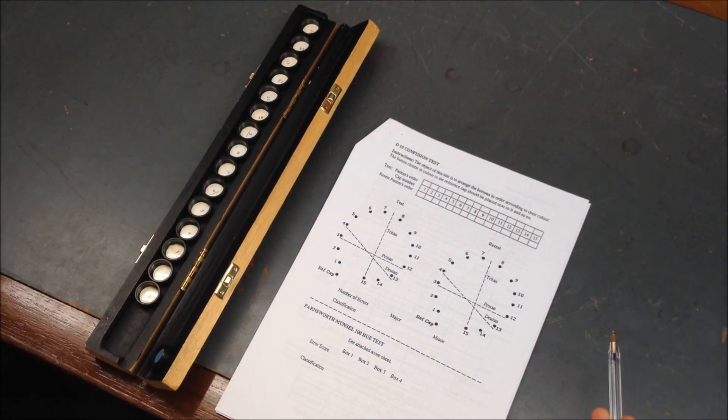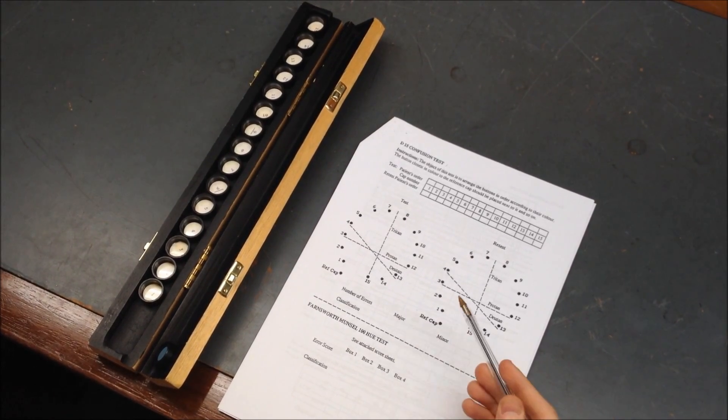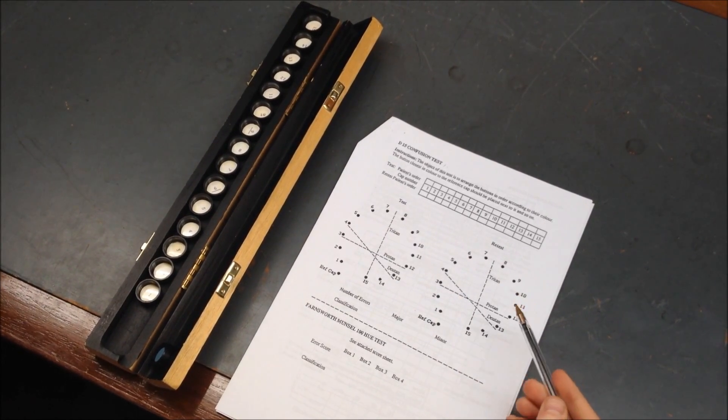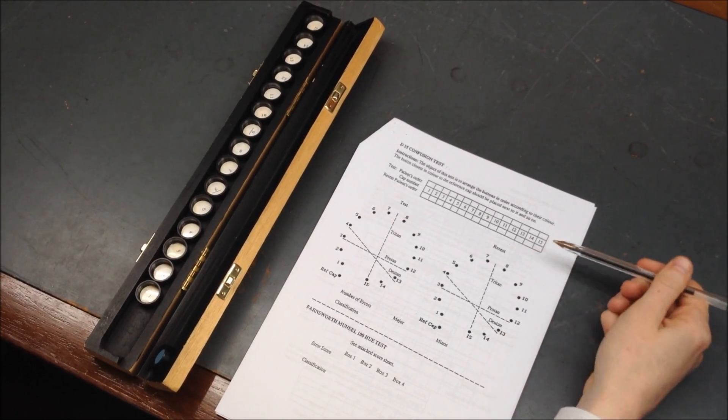Bear in mind this is textbook so there are variables from this. We normally repeat this test for reliability. And that is done using this plot and just these boxes underneath here.